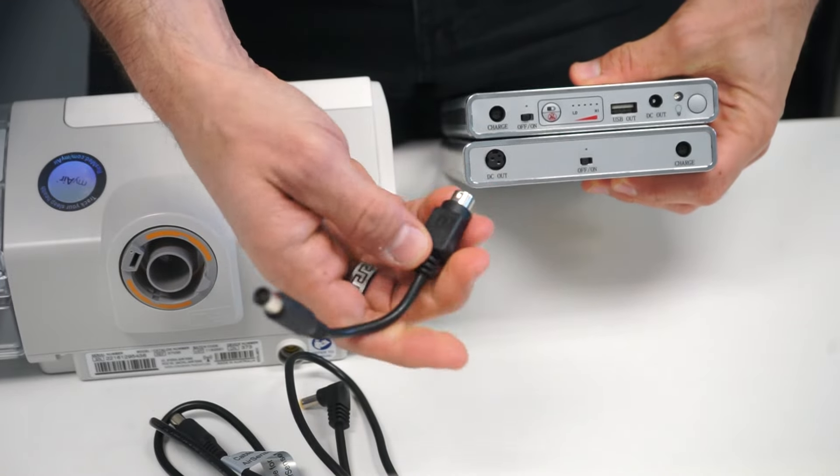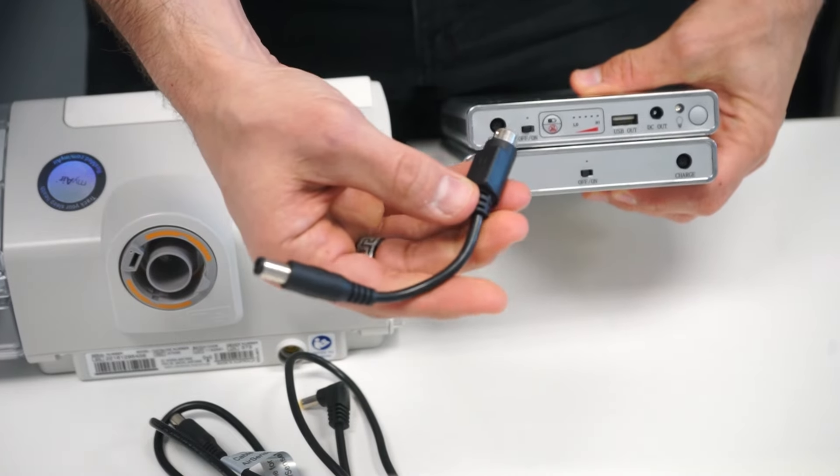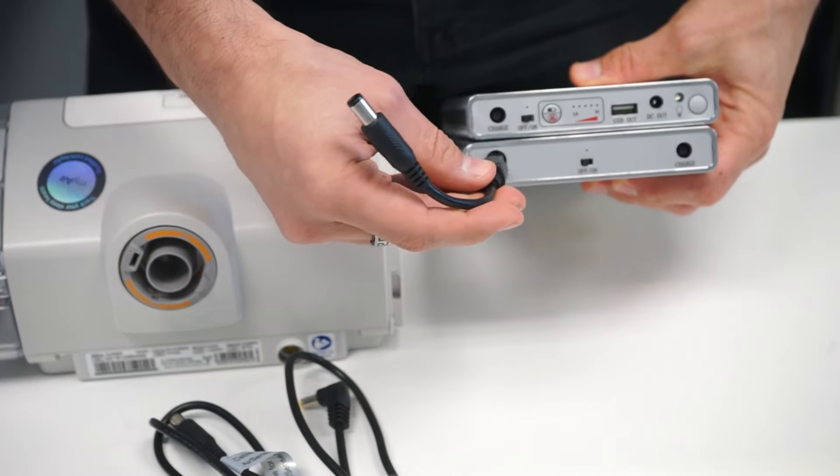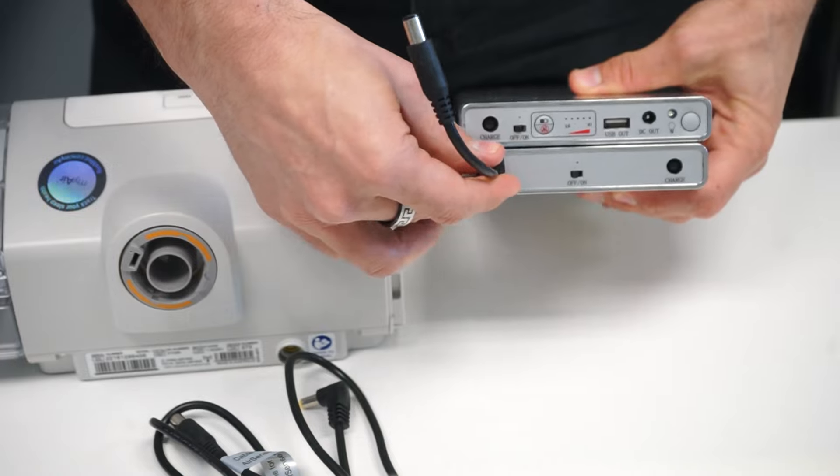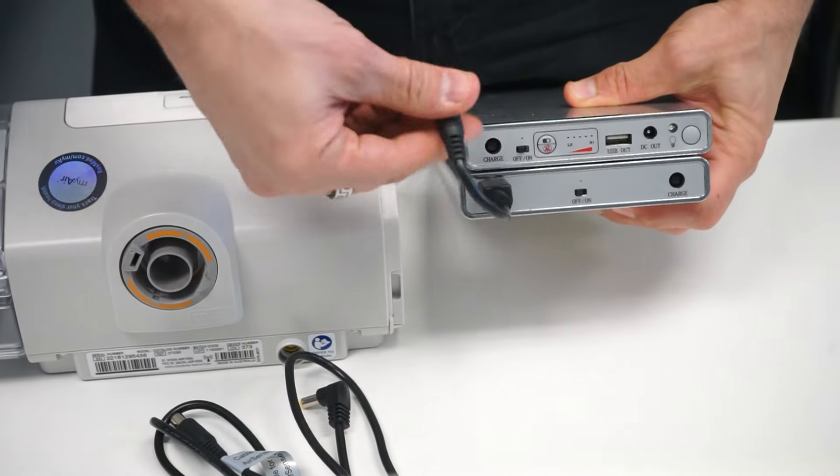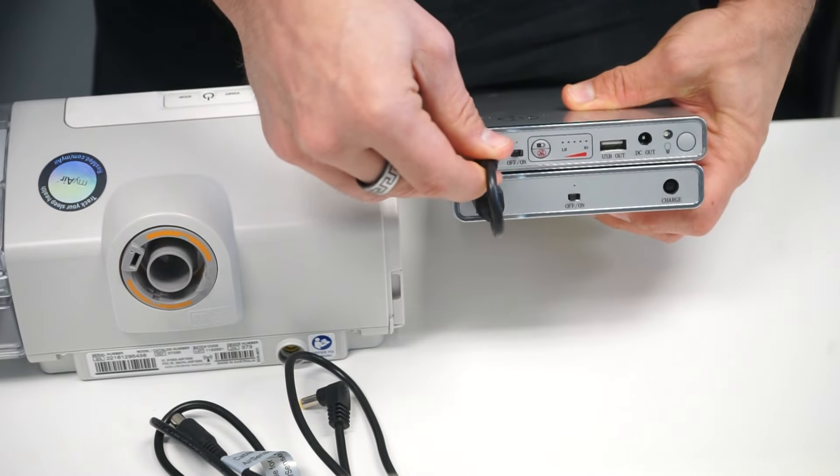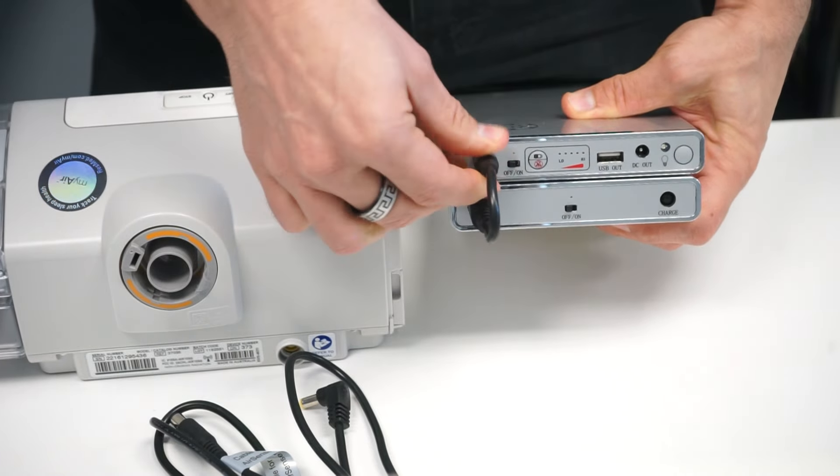There is a universal cord here that's going to connect your Co-Pilot 24 and directly go into the Pilot 24.